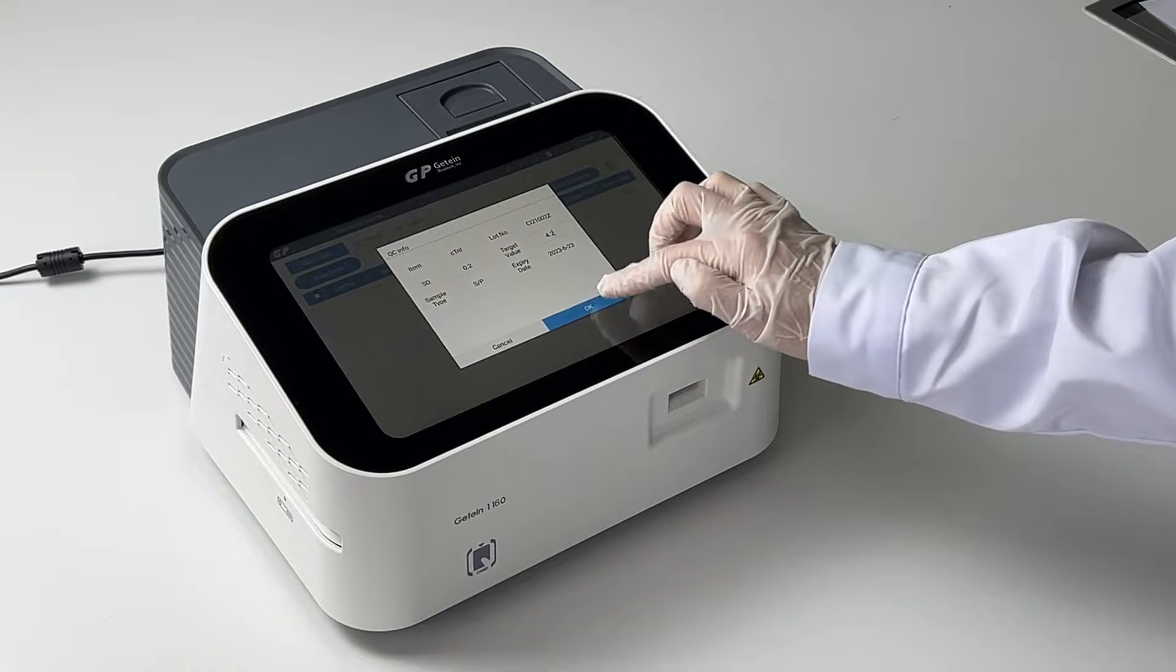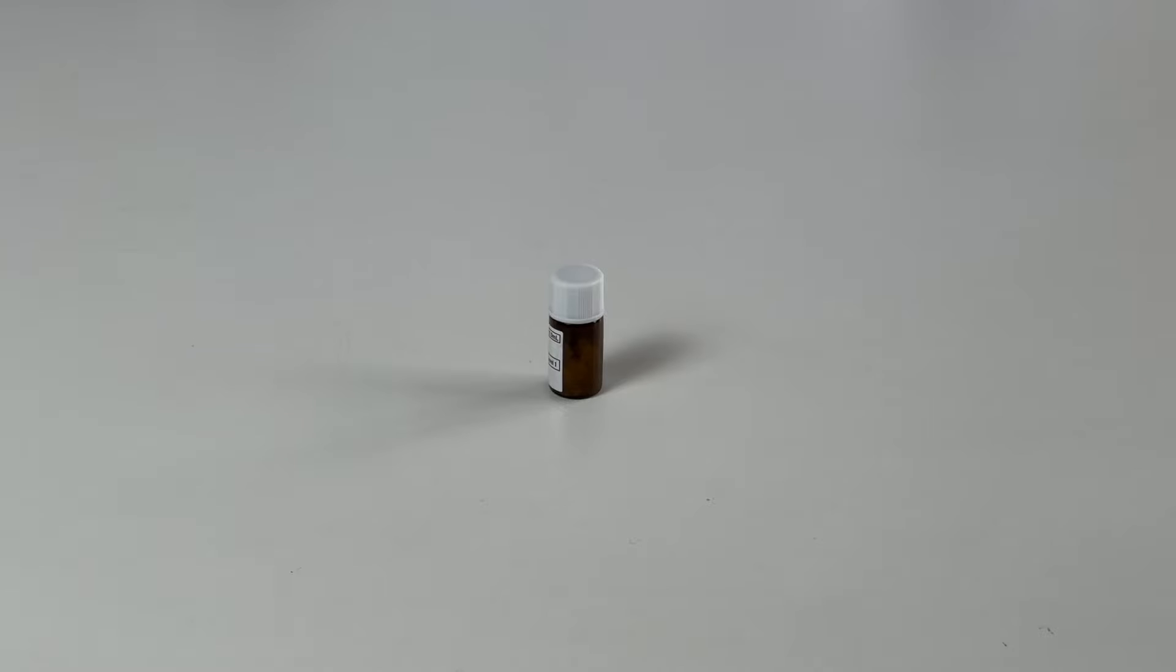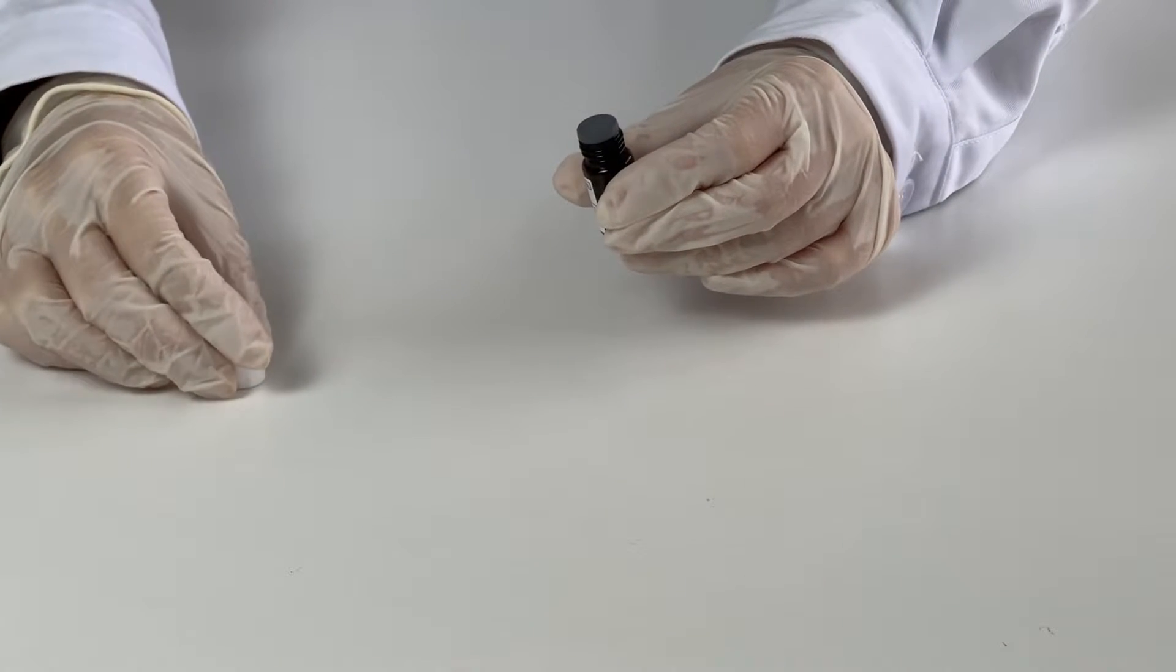Click the QC on the screen to start the test. Treat the control in the same manner as patient specimen. Refer to User Manual of Reagents to perform the test of control.